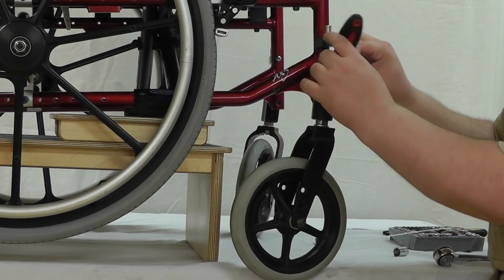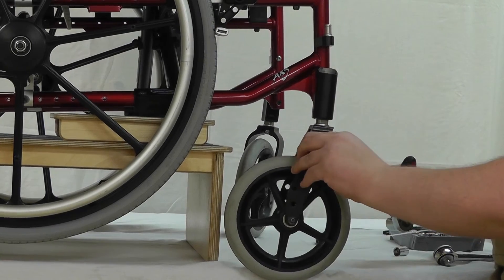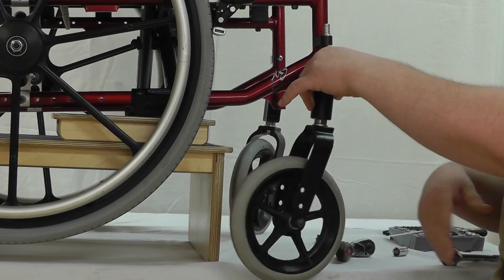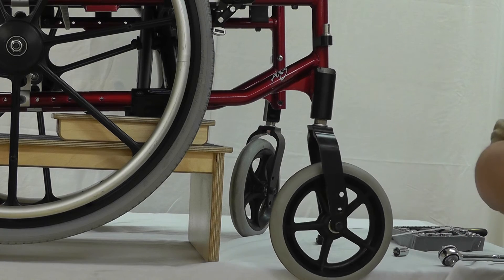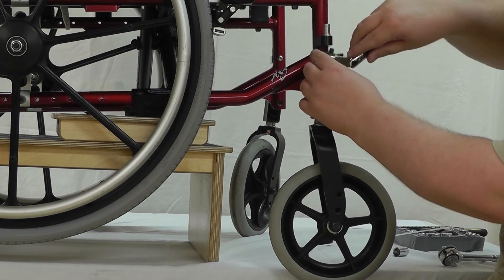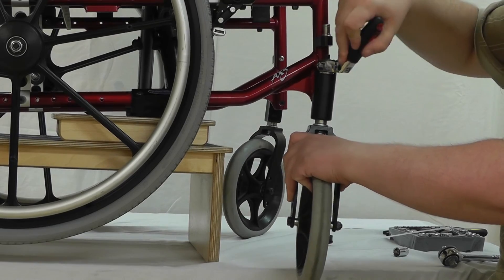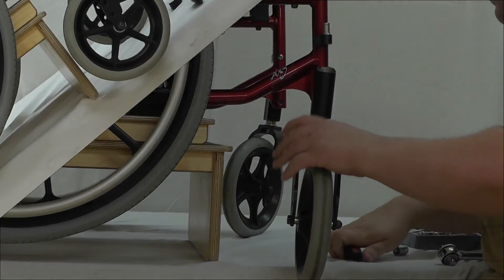That was loosening it — not a big deal, but now it's got more play in it. Put a lot of pressure on it and it's really too loose, and that's when you'll really see the buggy caster come into play. Now we want to tighten it back up — you don't want to over-tighten.